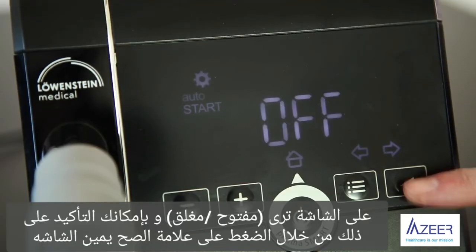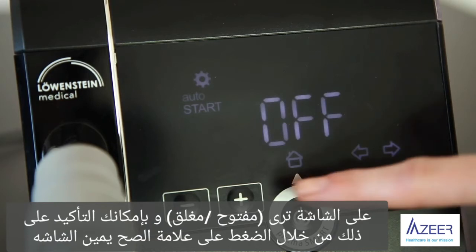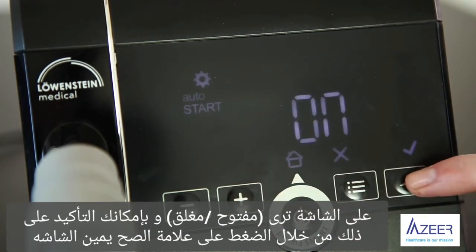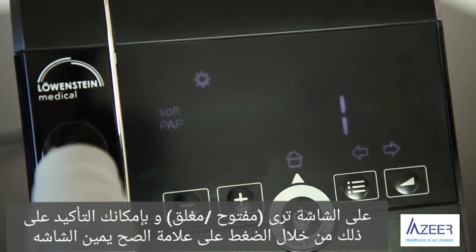In the display, you will see on or off, which you can confirm with a small check mark on the right of the screen.